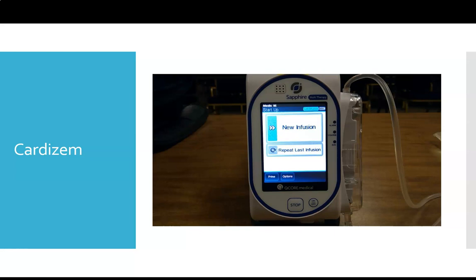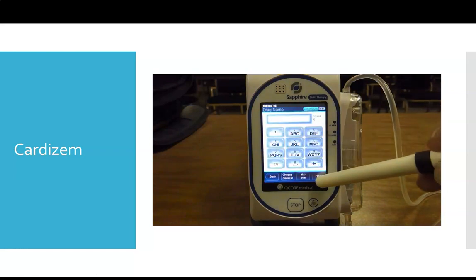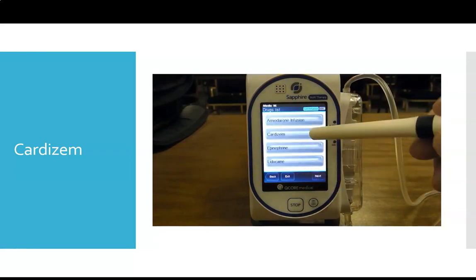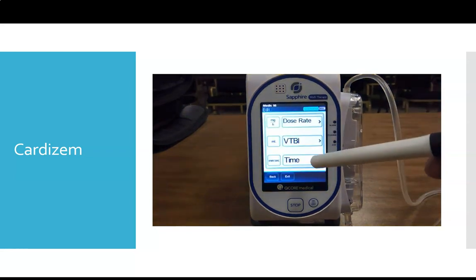So generally we're going to say, for the purpose of this scenario, we got an order for 10 milligram bolus of Cardizem, and we're going to do an infusion at 5 milligrams an hour. And you're going to see we're going to actually set all of this up at once. So we're assuming that we've already primed our tubing, we have our medication mixed up. When I come through here, we're going to find Cardizem, 100 milligrams for 100 mLs.